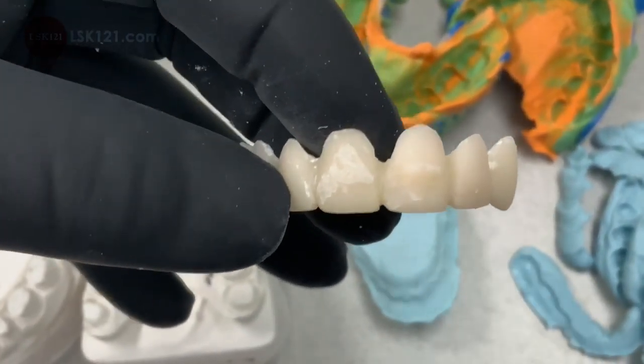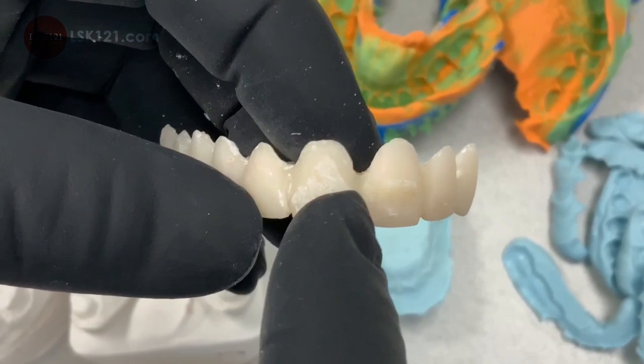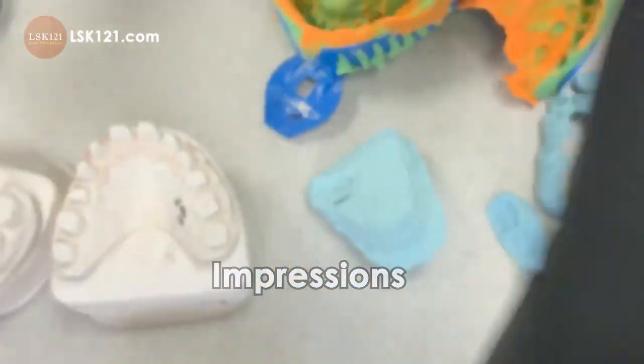However, whenever I make this temporization with a little more cut-out, there's a really huge gap — I cannot go that much. However, I could grind it here a little bit too. Anyway, the doctor did it and took an impression again.